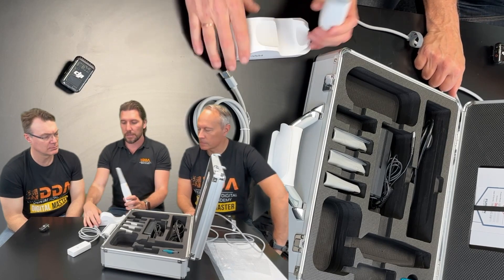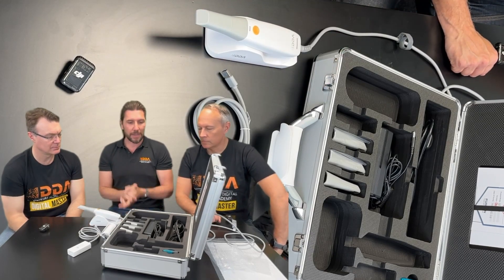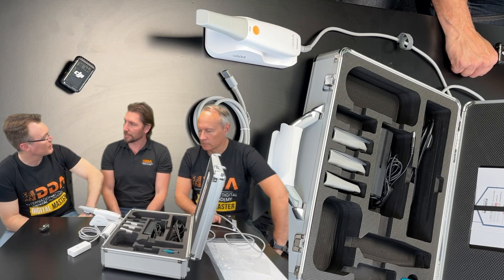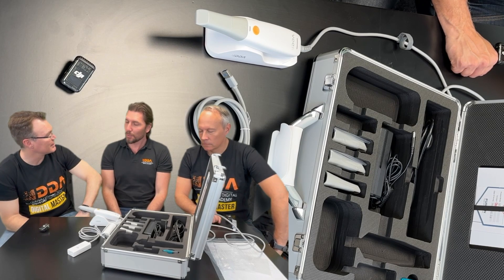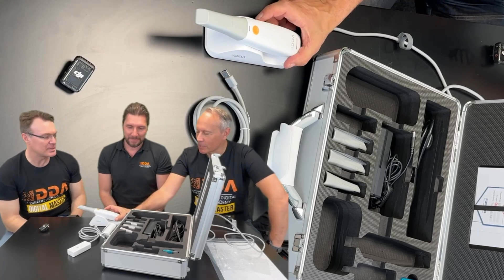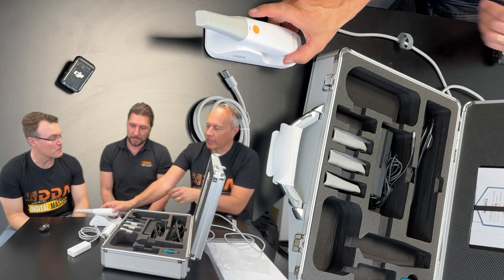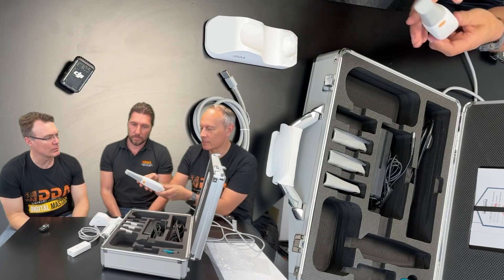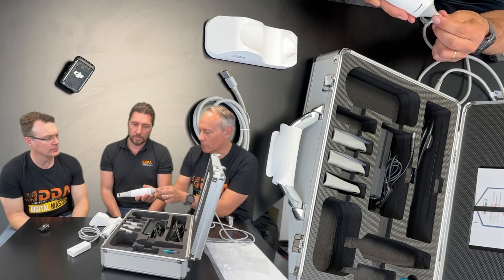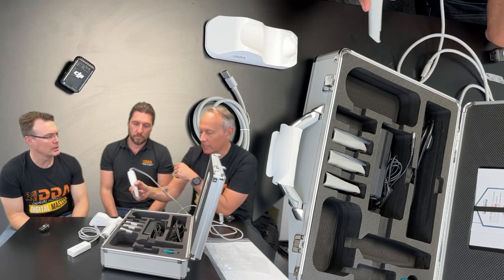You also have a nice little IDDA stand to hold the scanner on, and that's pretty much it. One thing to note is there's no calibration unit — it self-calibrates, so you don't have to worry about calibration at all. It's a really nifty little scanner. What I also really like is that it's nicely balanced and fits comfortably — it's not heavy, not bulky at all. The cable is integrated, so you're not going to get problems with breakages at the connection.